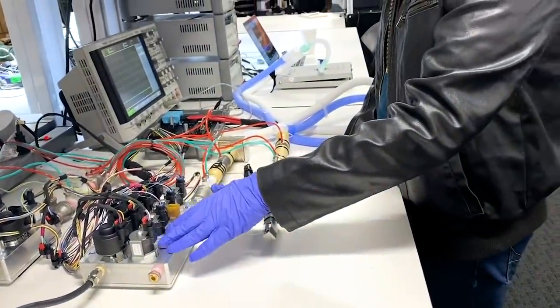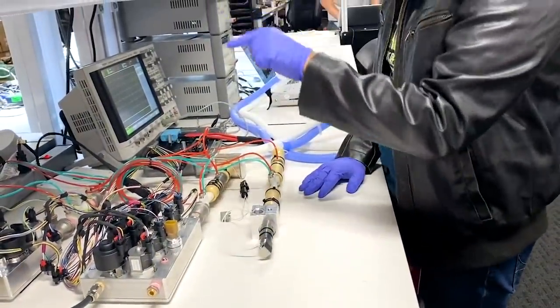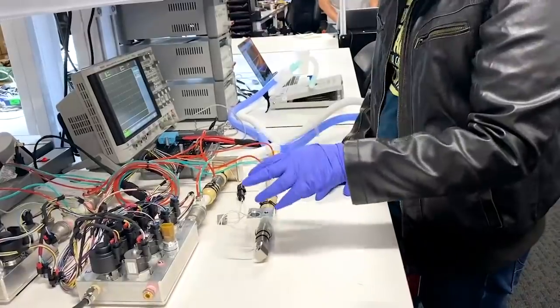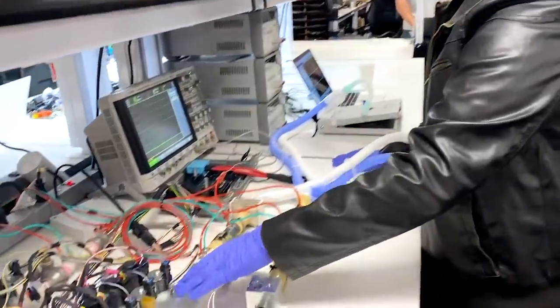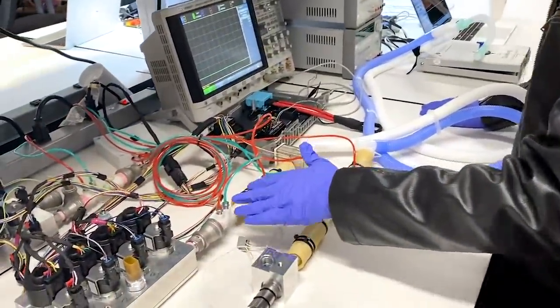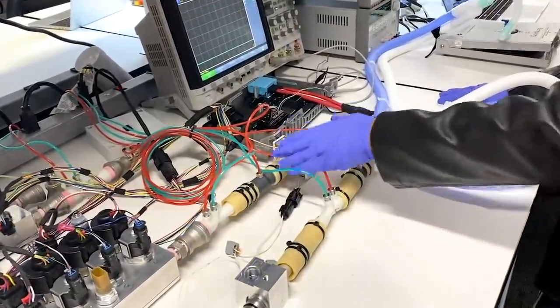And then it passes through a valve body which is used to create the waveforms, the pressure and the volume waveforms. Then the air coming out of this valve body goes to a bunch of sensors. So this is a flow rate sensor. This is a pressure sensor.